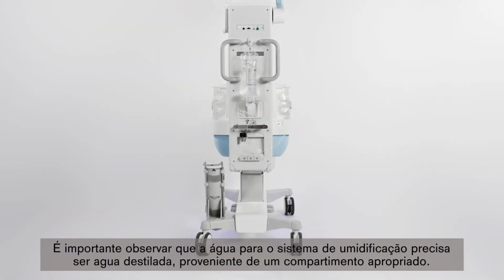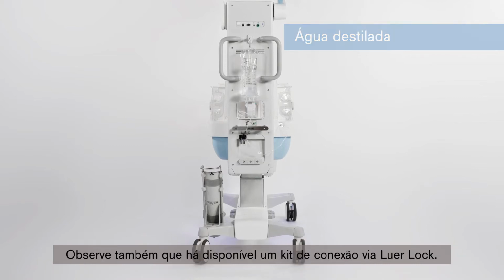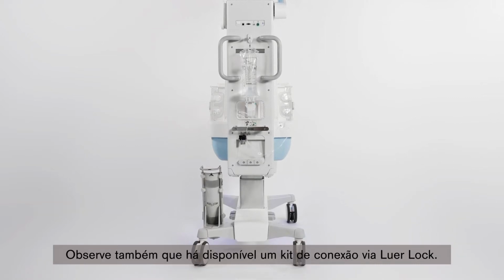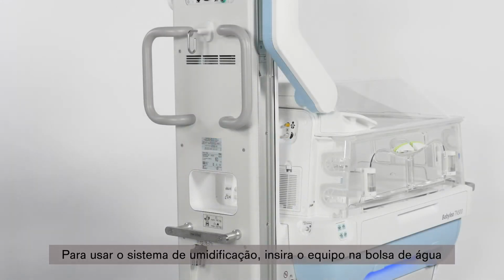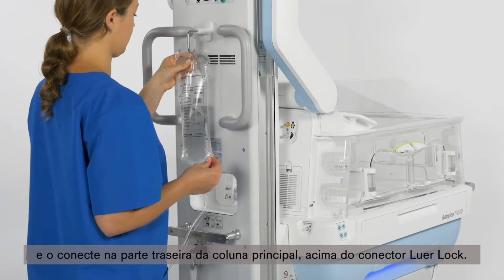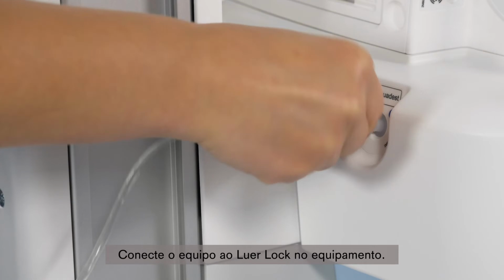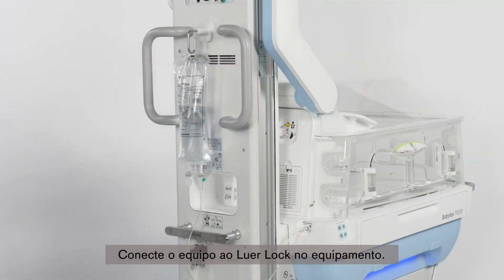It is important to note that the water for the humidification system must be aquadest from either a water bag or bottle. Also note that the connection kit with a Luer lock connector is available. To use the humidification system, attach the water bag or water bottle to the holder on the rear of the main column above the Luer lock connector. Connect the connection hose to the Luer lock connector on the device.